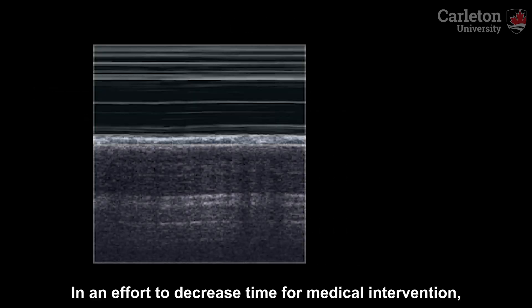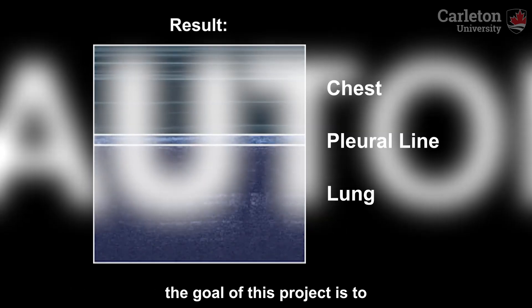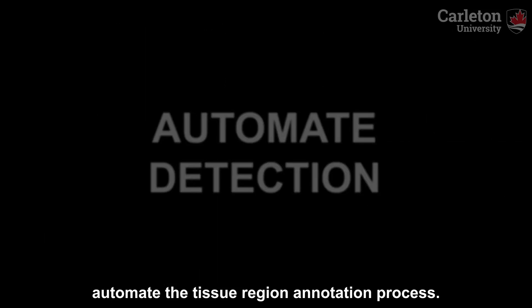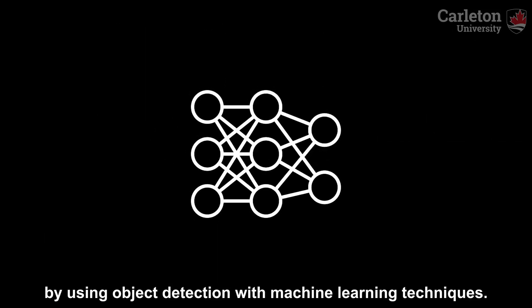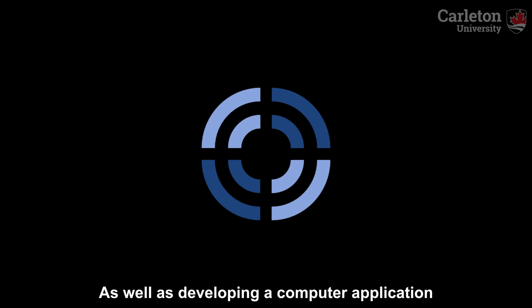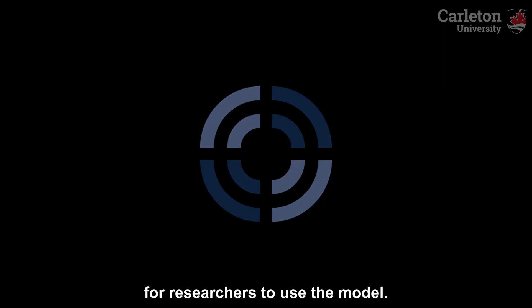In an effort to decrease time for medical intervention, the goal of this project is to automate the tissue region annotation process by using object detection with machine learning techniques, as well as developing a computer application for researchers to use the model.